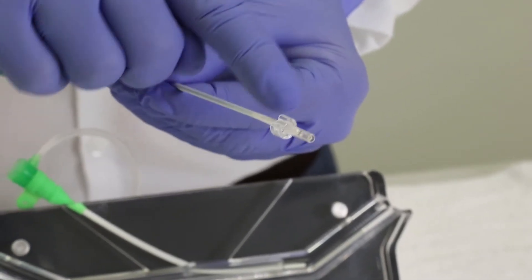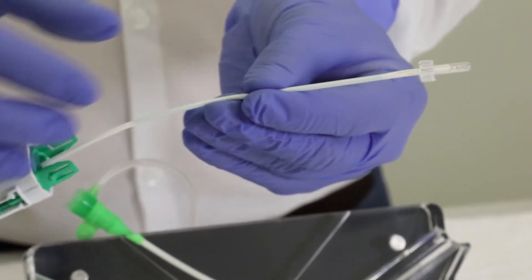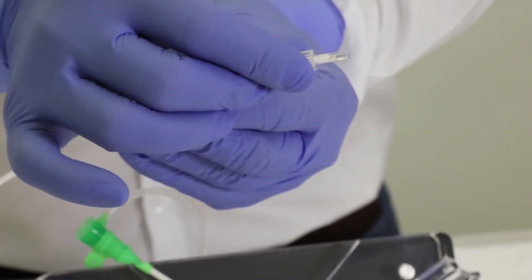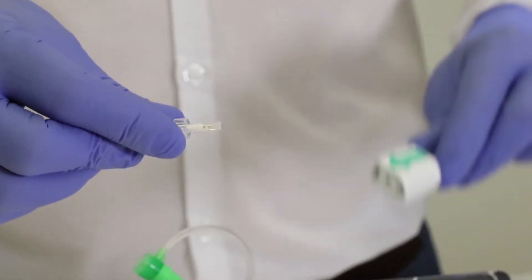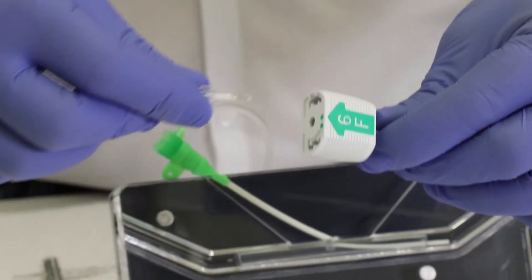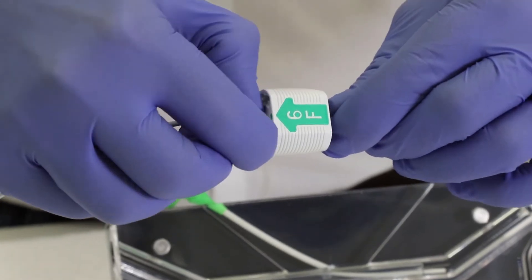This little piece is called the bypass tube. It covers the anchor and protects it from dislodgement during delivery. It is called the bypass tube because it bypasses the hemostatic valve on the sheath, and this is the part you will grab to load the device into the sheath.